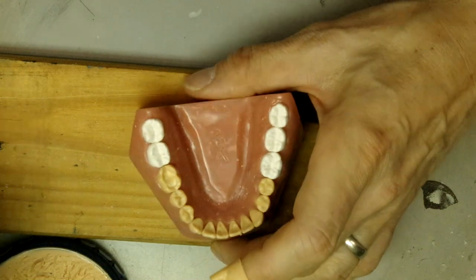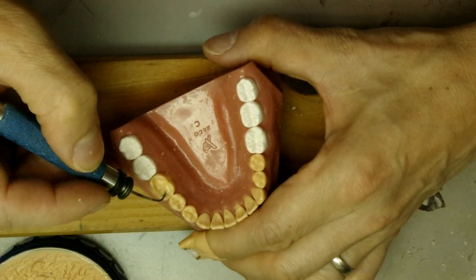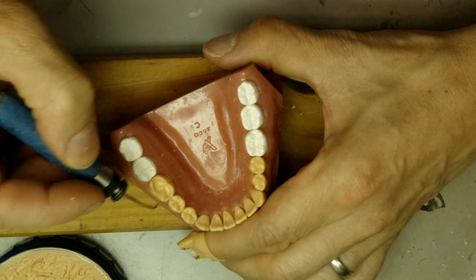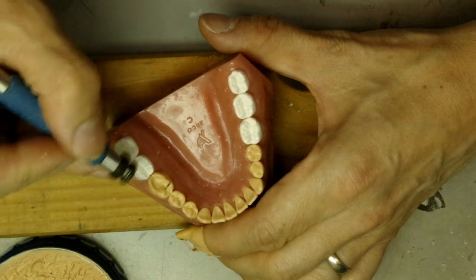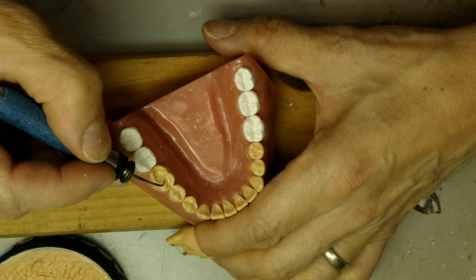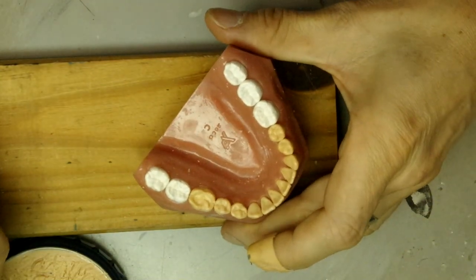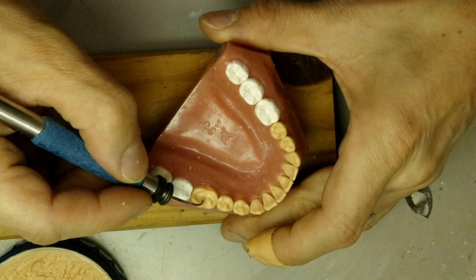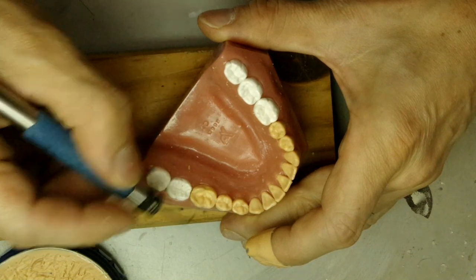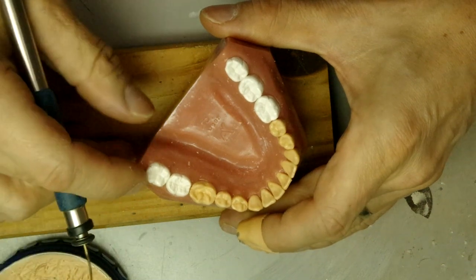Now I'm going to start building up the triangular ridges. The first one is going to be the mesiobuccal triangular ridge. I like all of these to travel towards the center of the tooth — don't just have them go straight across like a transverse ridge; have them go towards the central pit. Remember to make them like a teardrop: the bottom part will be wider, then you drag it up to the top towards the cusp tip, and that will give you a nice round, almost triangular shape.